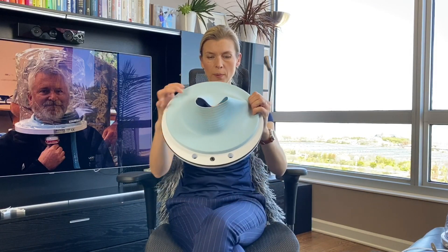The silicone part can be replaced. So if you wanted to use this helmet again and again, you just need to replace the silicone neck seal. The openings for in and out are on the bottom of the ring, and one of the reasons is that it will reduce the noise in the helmet. The multipurpose access port is right here in the middle, so you can fit a straw and the patient can have a sip of water, fluid, or any liquid food. Also, it can be suctioned.